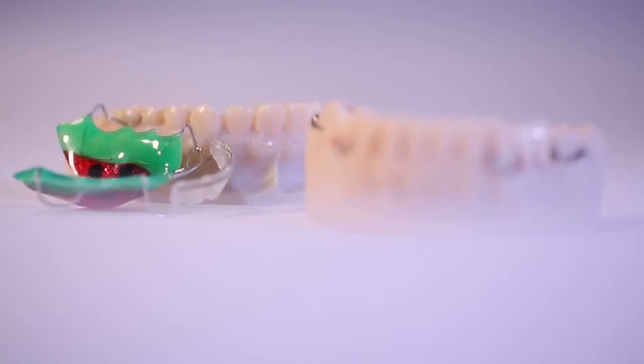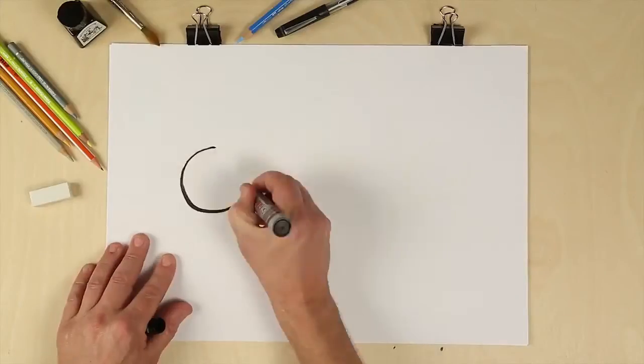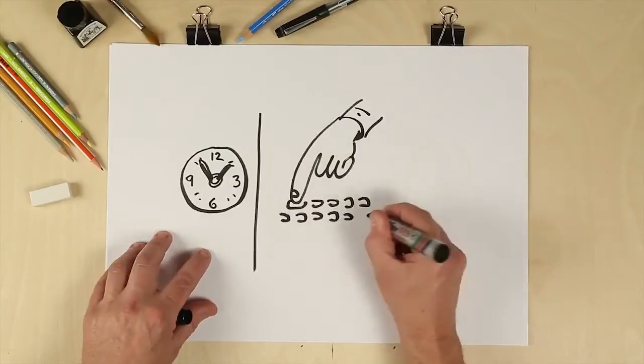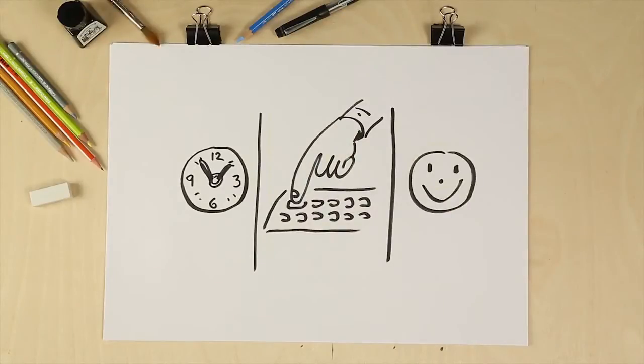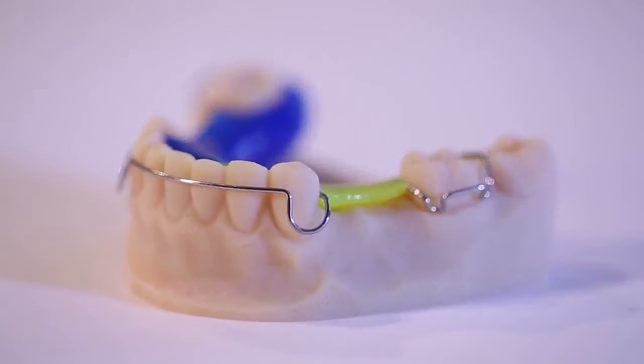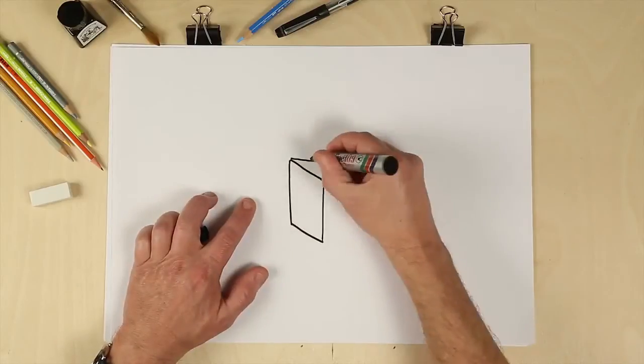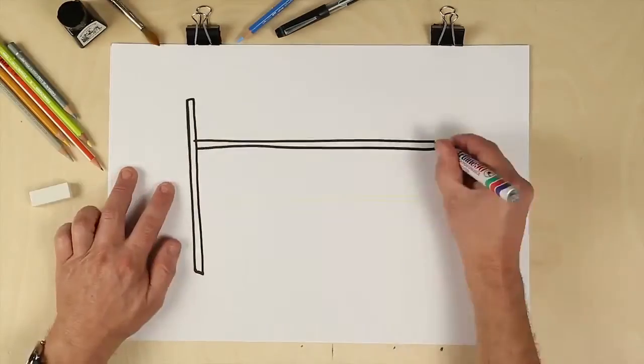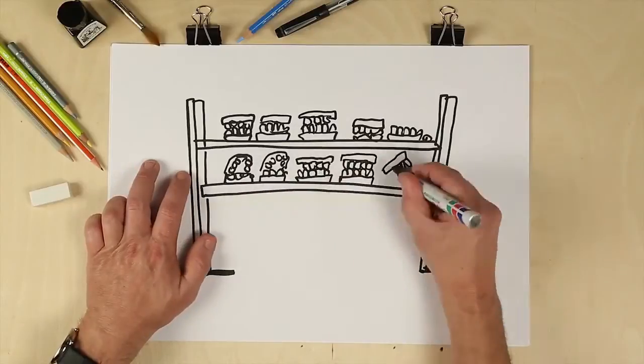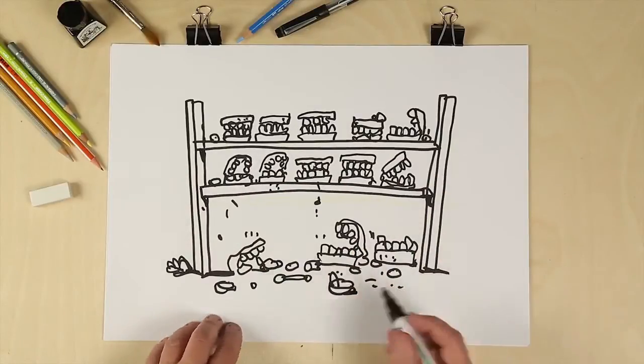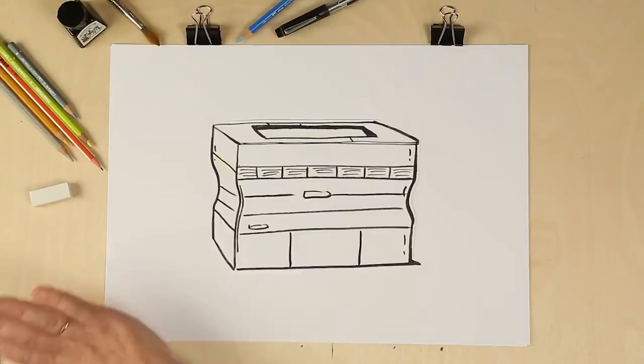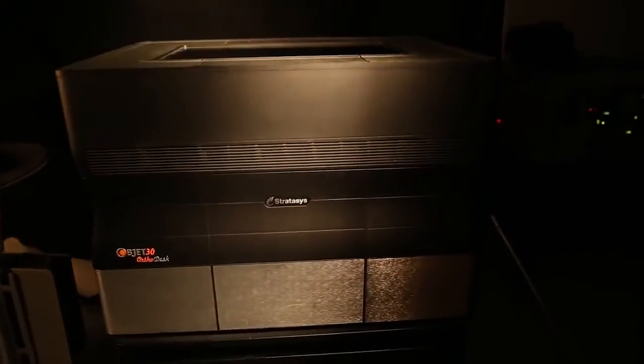We can now create the full range of orthodontic appliances using the new model. The process is quick, clean, and painless with unbeatable accuracy and precision. And since all of the information is stored digitally, there is no longer any need to store bulky physical models for years. With digital orthodontics, we can make our practices far more efficient and successful.